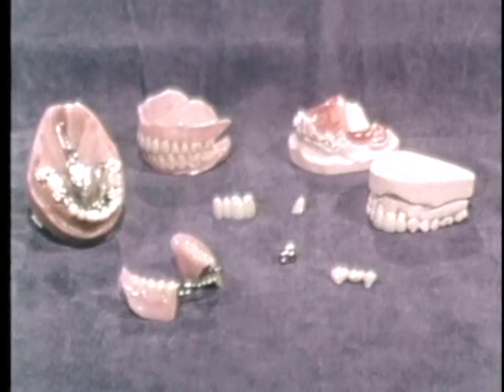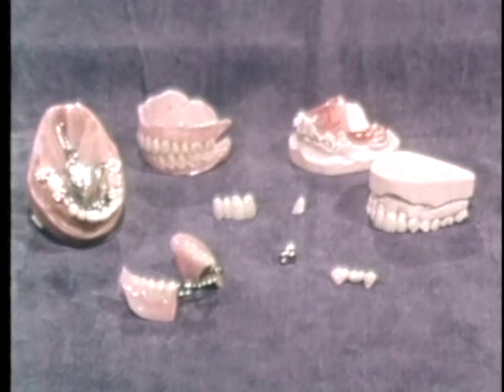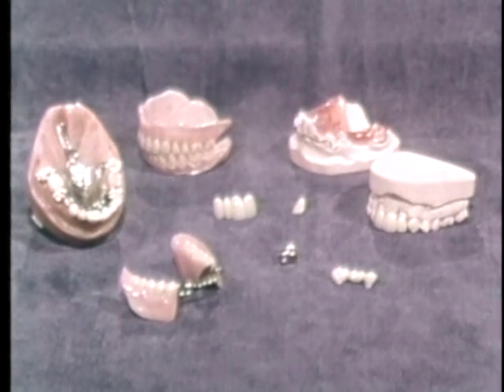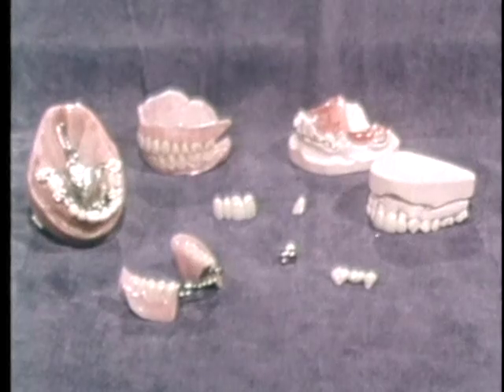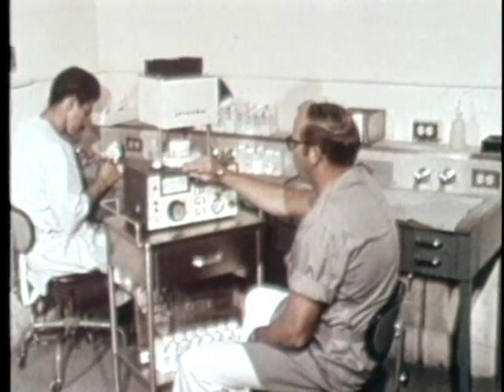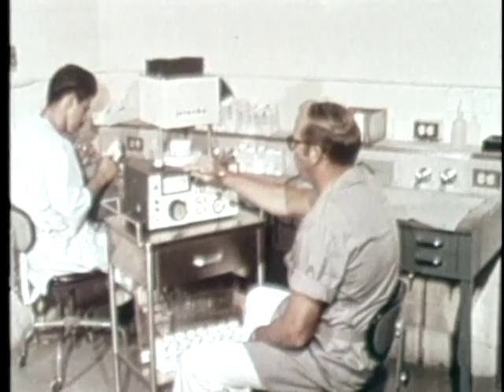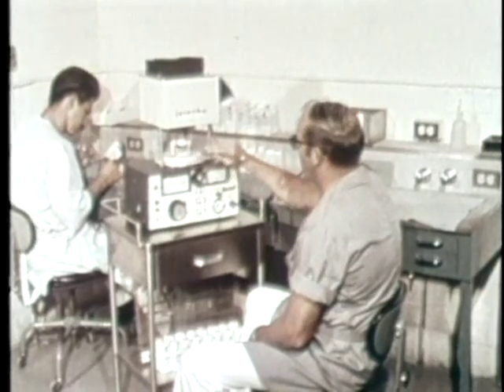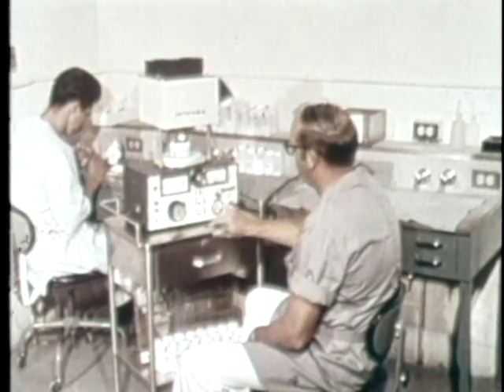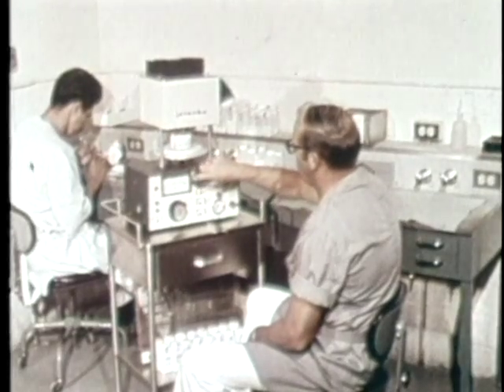Proper occlusion, which is established through centric jaw relation records, is a major influence on the fit and appearance of an appliance. All the procedures that we have discussed have been designed to aid the RDA in fabricating the prosthodontic appliances that will meet our patients' needs.